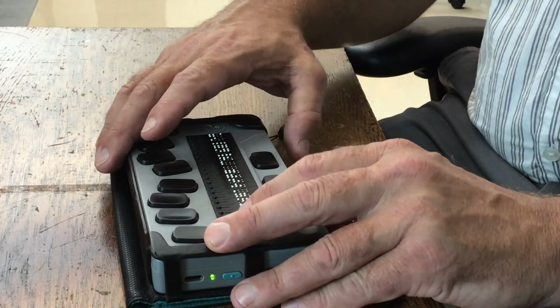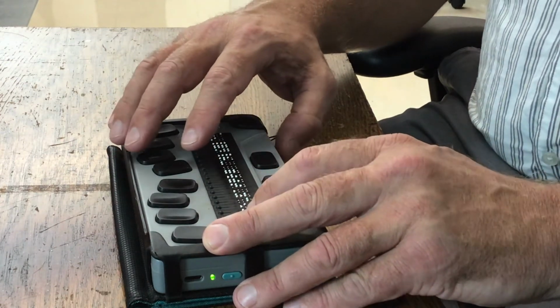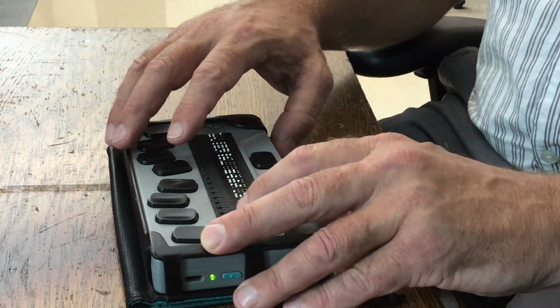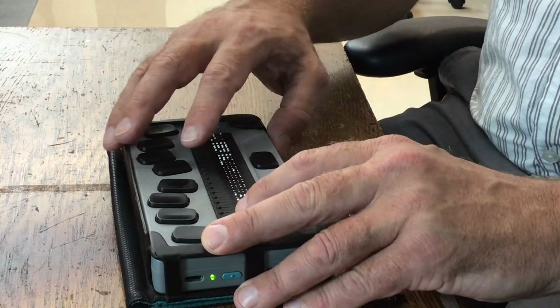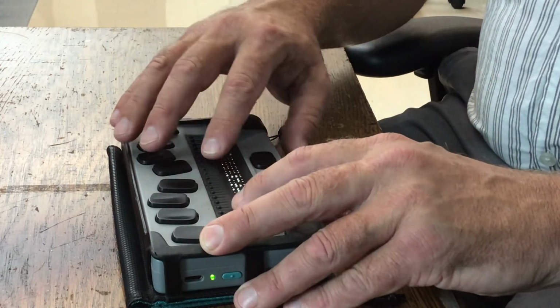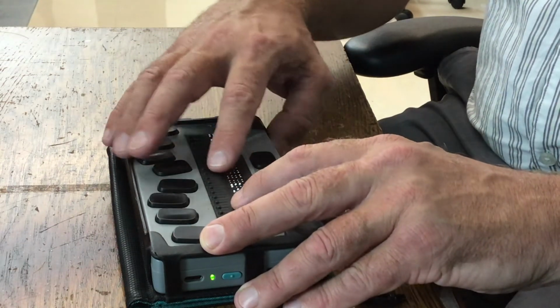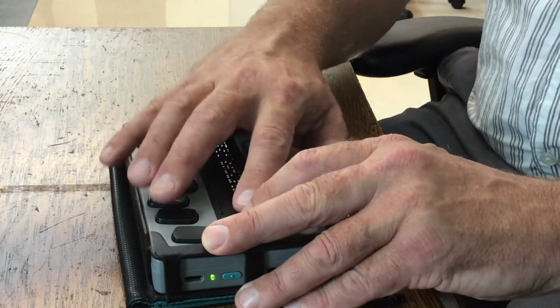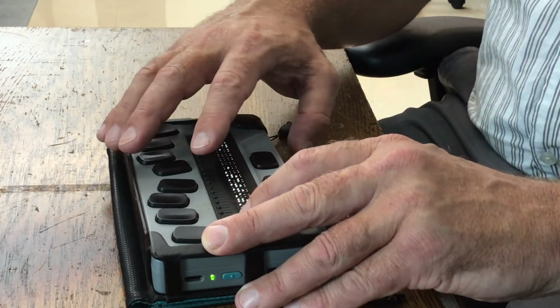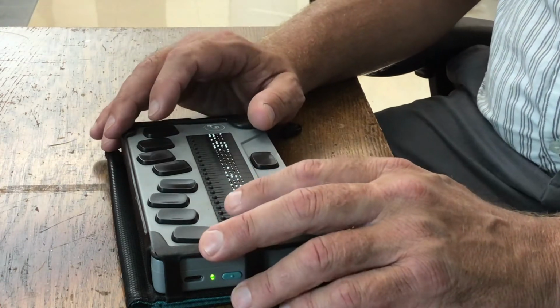And what else do we have in here? Date and time, and that's like a little program on here, so you can go in here and check the date, check the time, or change it. And then we get into settings, and you have user settings, braille profile, Wi-Fi, Bluetooth, activate exam mode, software update, about, and close. So I try to set these things up before I give them to the kids.